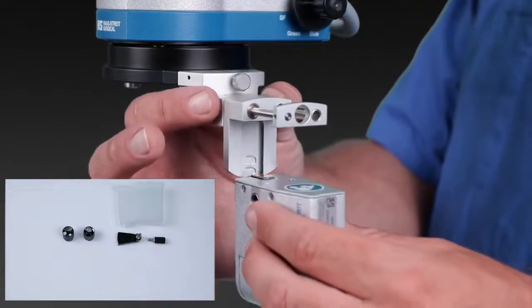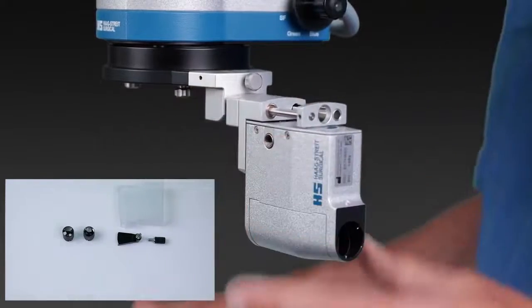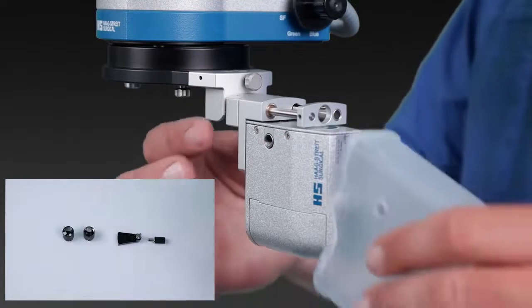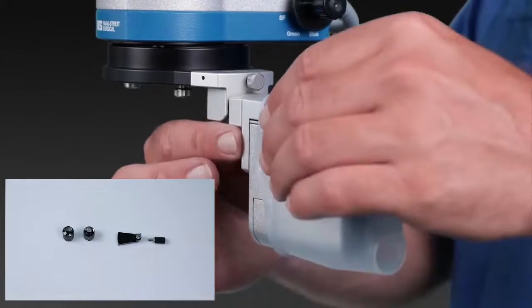The prism body connects to the suspension with a simple click. The sterile cover slides easily onto the inverter body.